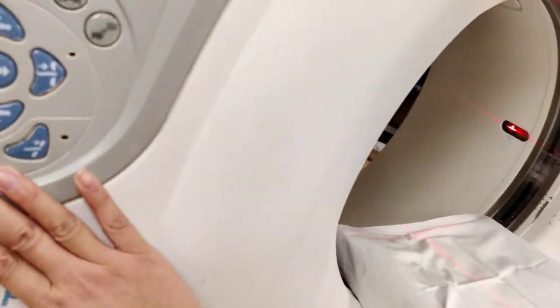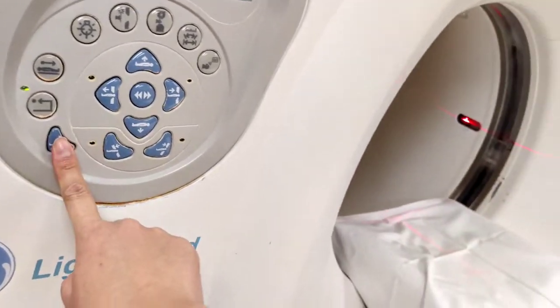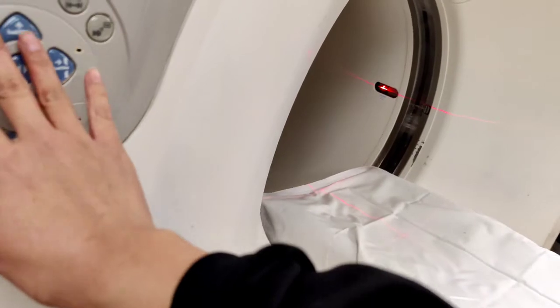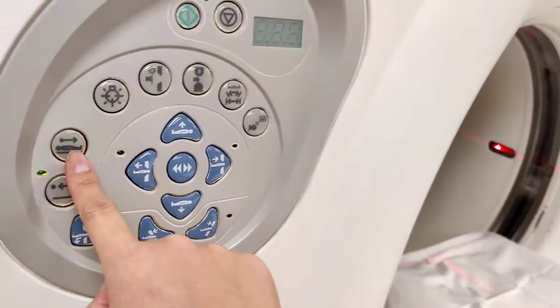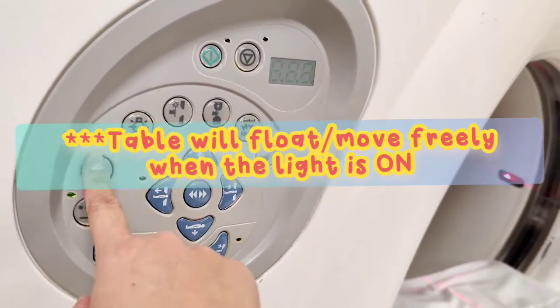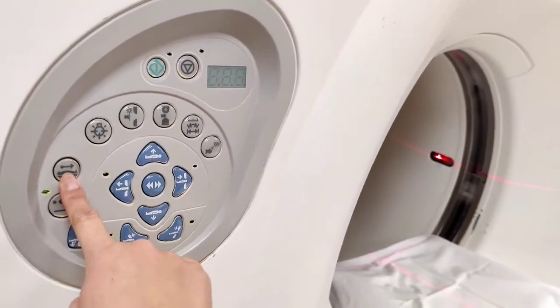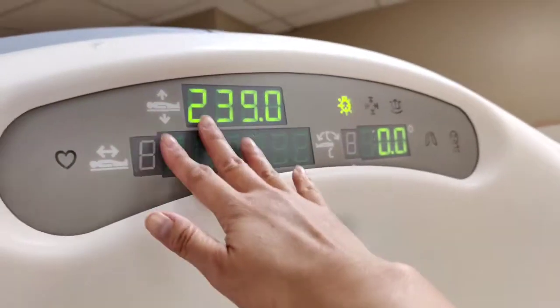This is to bring the table out. If you press and hold this button, the table will come out and down automatically and fast. Sometimes there's a lock button — this is the lock button to keep the table locked so it won't move in and out. You'll know it's engaged when you hear a click.